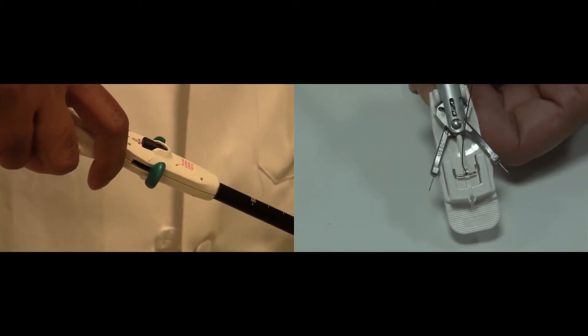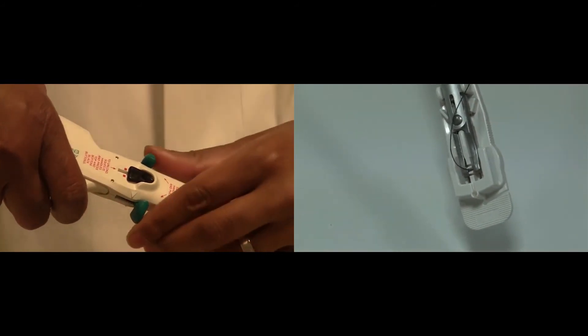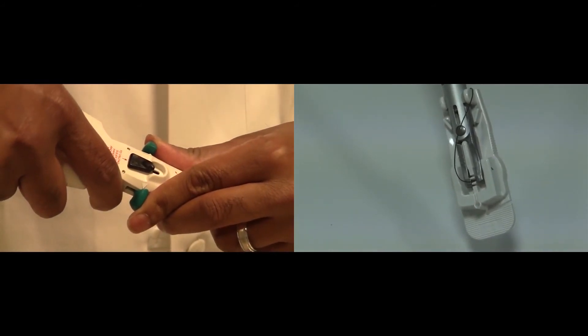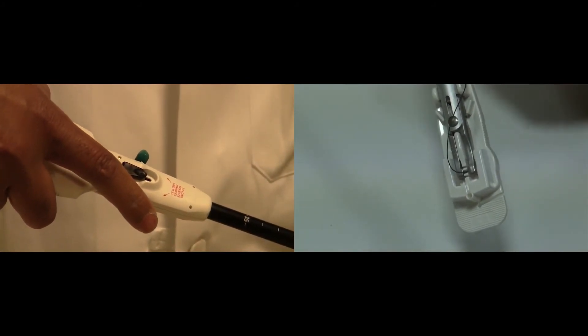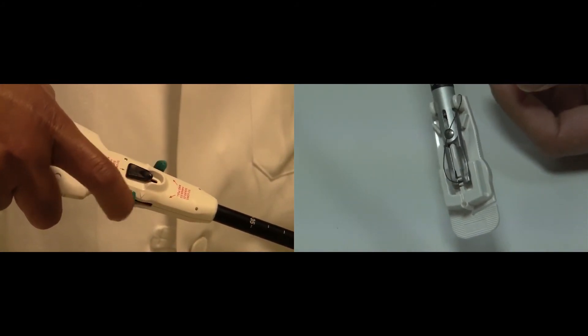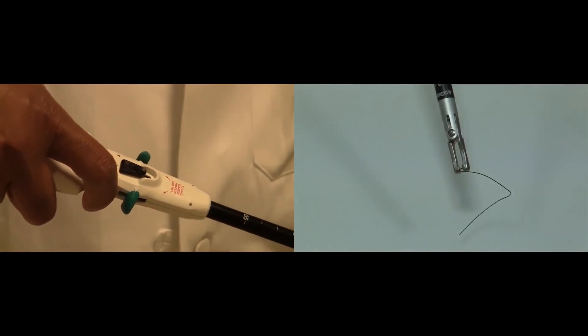Take the two levers and slide them back together, and the needle is loaded. You can now toggle the device and the needle goes back and forth. The cartridge simply pops off and your new needle is ready to go.